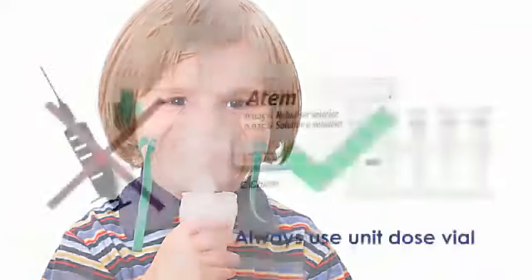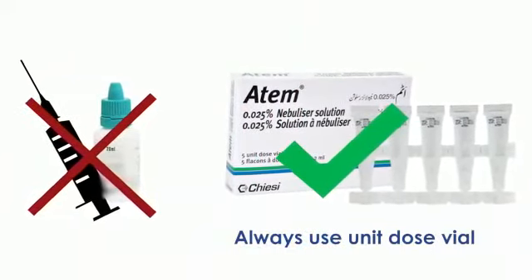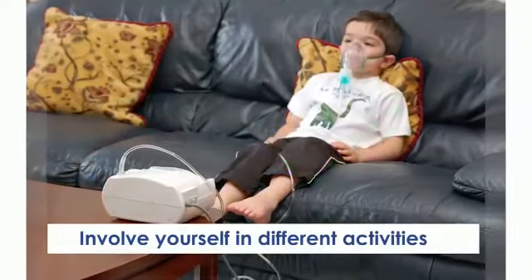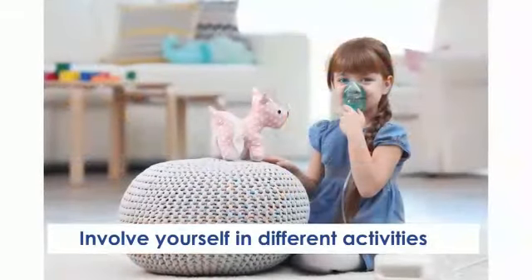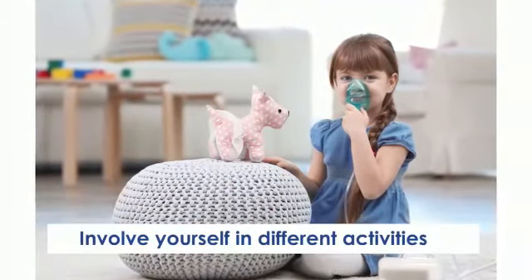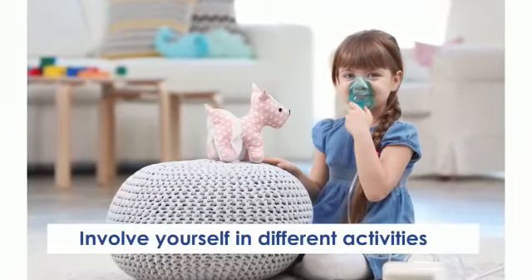To avoid the chances of contamination, always use a unit dose vial, not a multi-dose vial. Distract yourself by watching TV or listening to music. Set up an activity to occupy young children during the nebulizing treatment. Puzzles, books, or coloring may help the child to sit still for the length of the treatment.